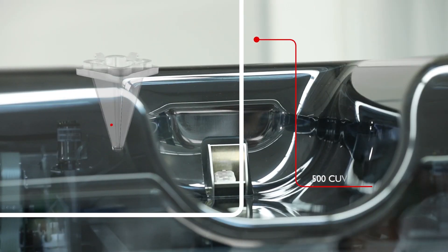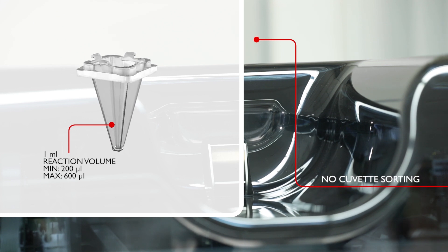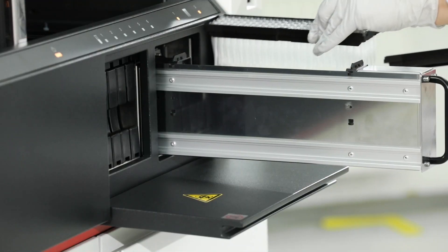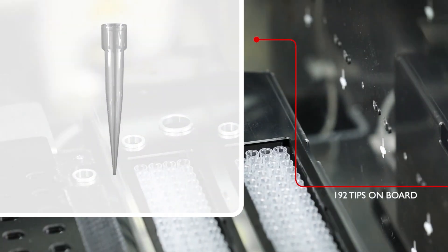Together with the system, Diatron provides unique stackable reaction cuvettes that eliminate system handling errors and reduce shipping and storage space. Diatron's disposable tips ensure a secure seal for every sample.